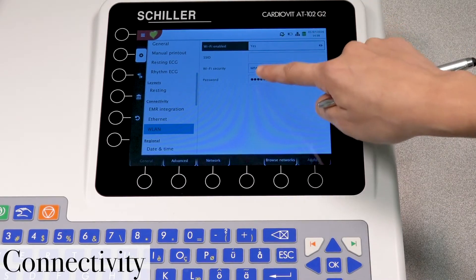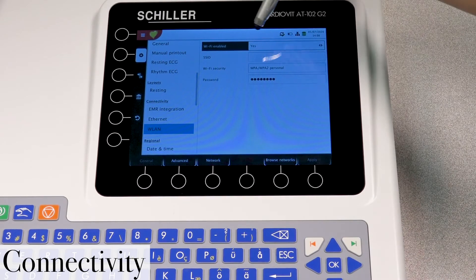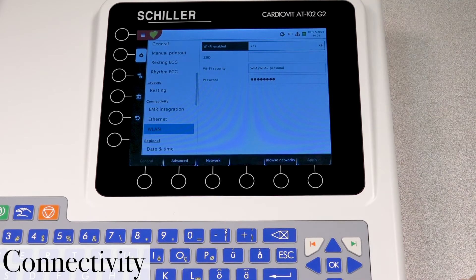Now it's in blue and you're able to move up and down here on the right side now. So your Wi-Fi is currently enabled. So we can move on to the next one.